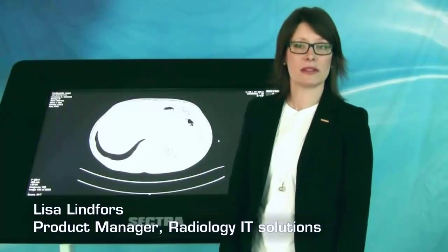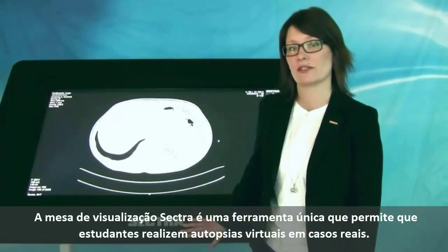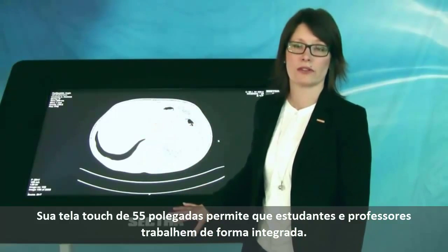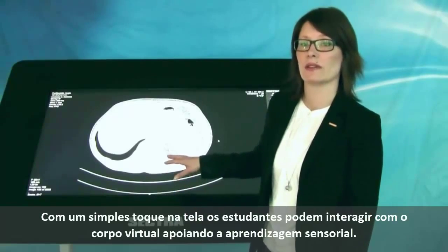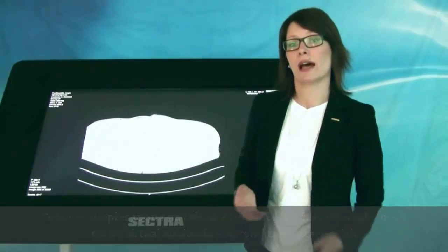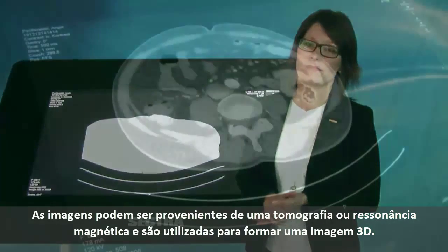The visualization table is a unique teaching tool for interactive anatomy education, as the students can perform virtual dissections of real-life cases. This is a large multi-touch display allowing the students and medical professionals to work and interact together. By simply touching the screen, the students can interact with the virtual body, supporting the tactile memory. I will now show you the visualization table and the benefits it brings to you and your hospital or institutes.